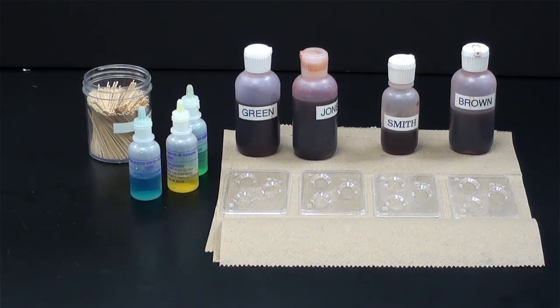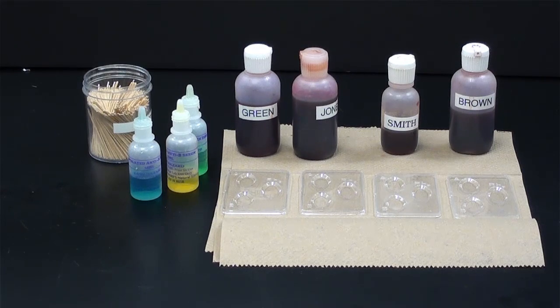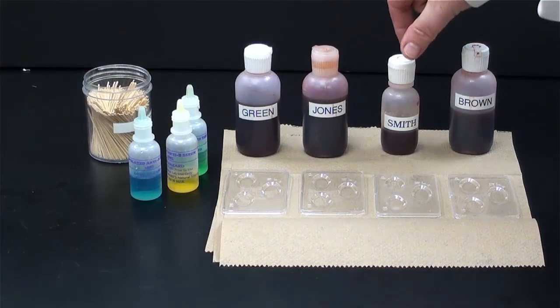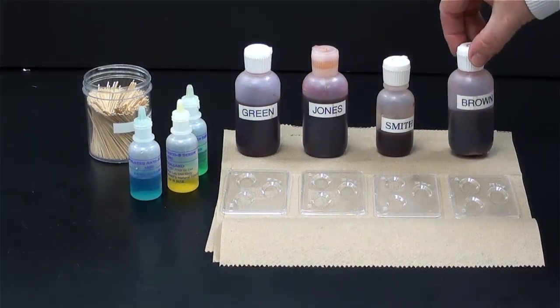This is actually modified dog blood, not human, but we're going to pretend that this belongs to Mr. Green, I think Ms. Jones, Mr. Smith, Ms. Brown.